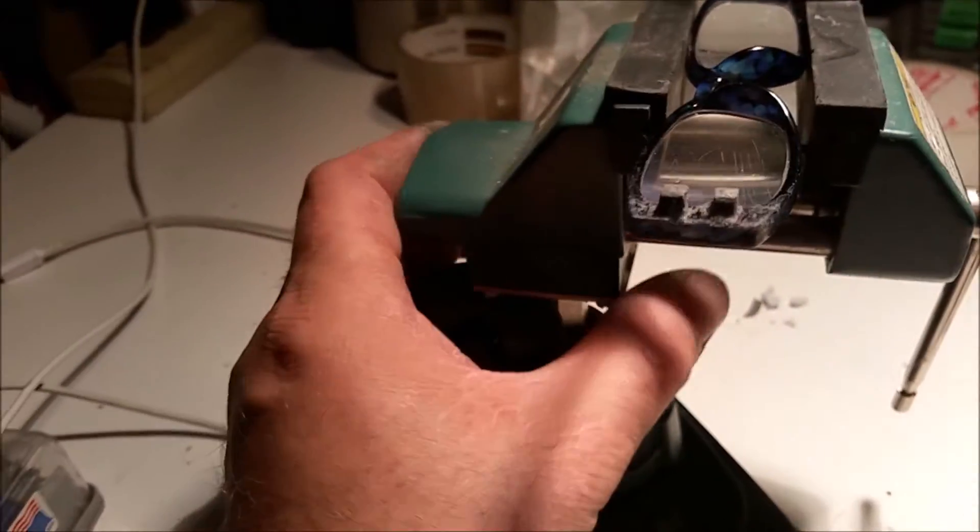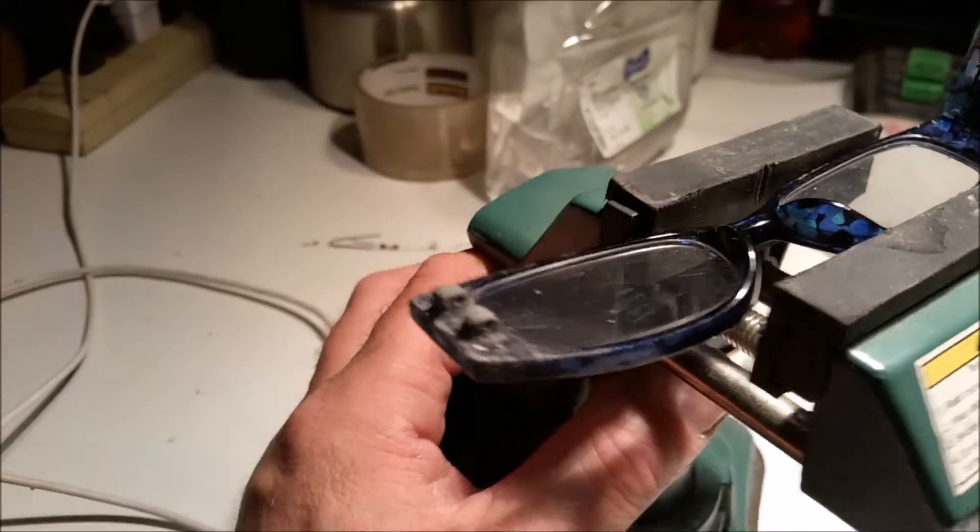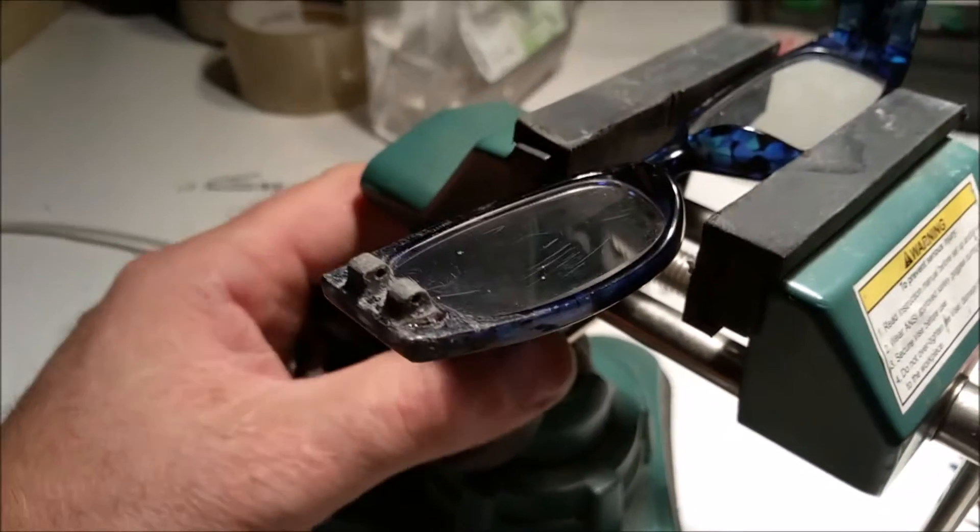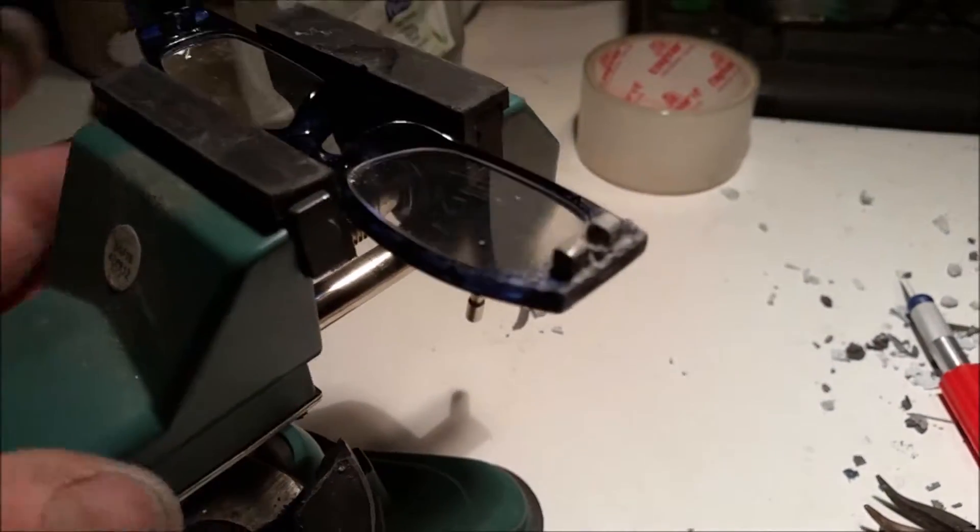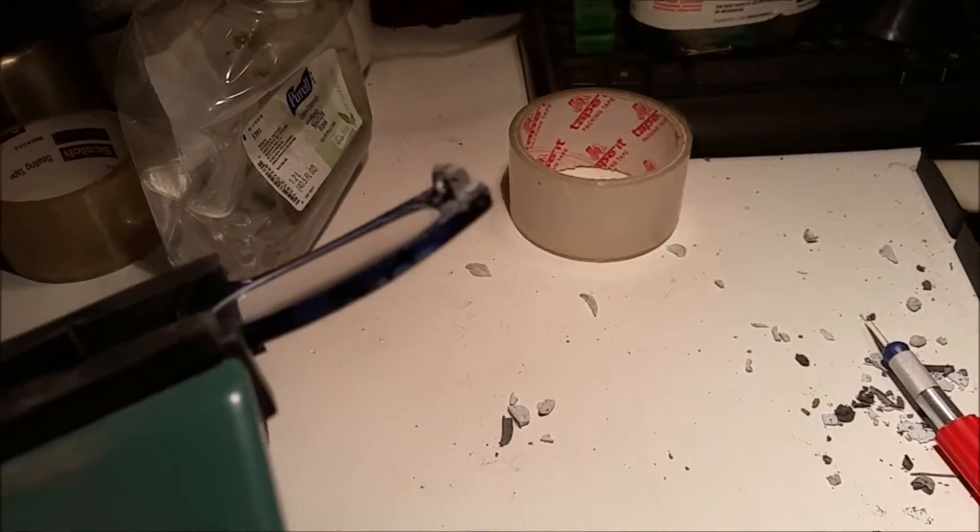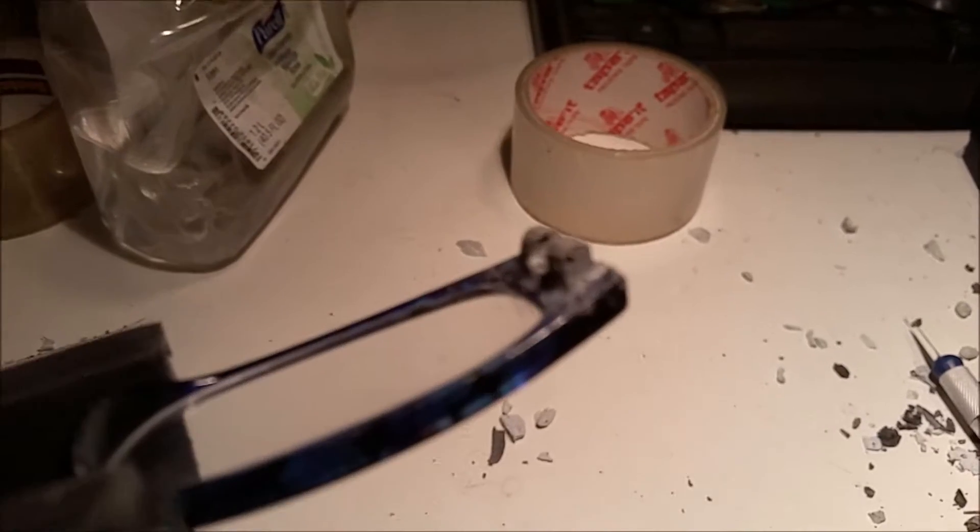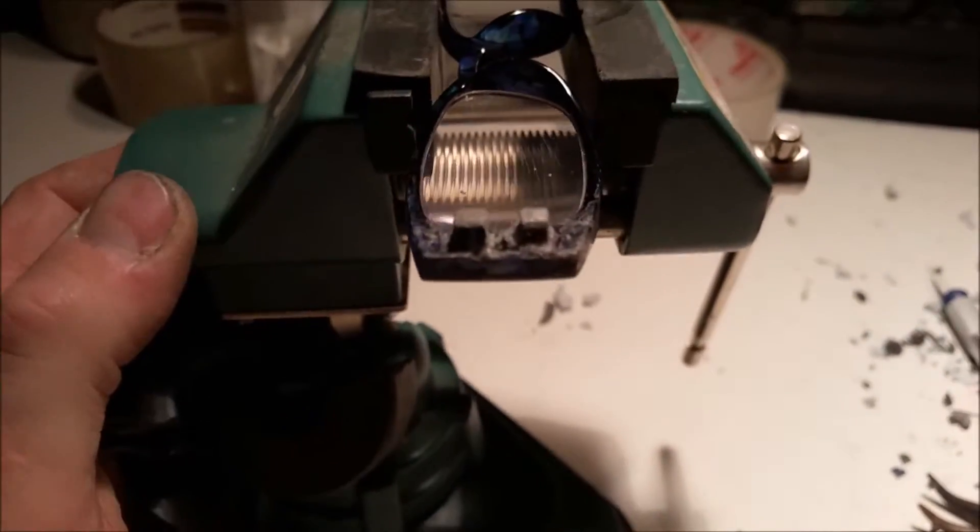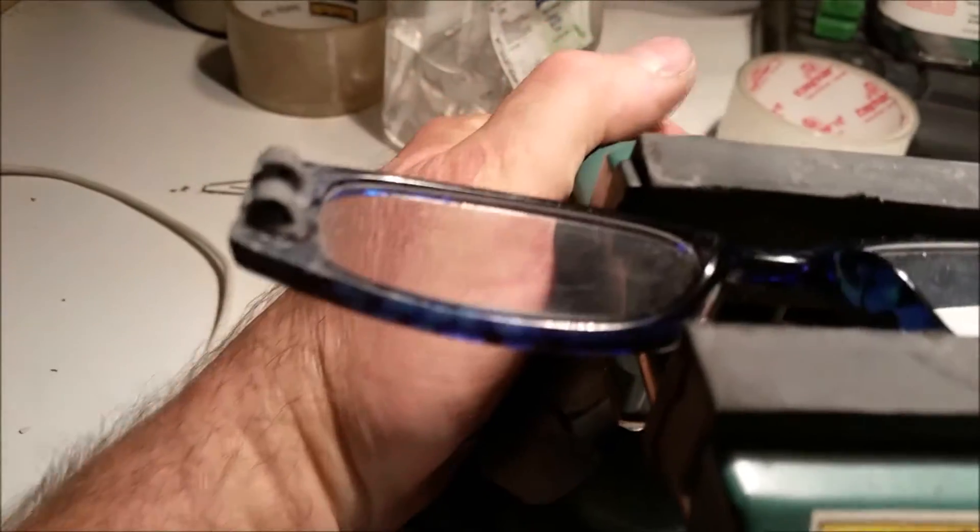Okay, after playing with it for some time, putting different stuff, the one for metal, this is how it looks like. There's the little hole. Not pretty. I should have taken the glass out or just covered it because I scratched it up. But it's okay because it's only a 99 cent glass, just for the sake of the video.